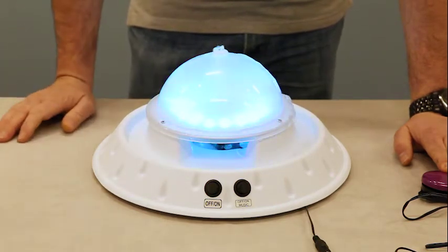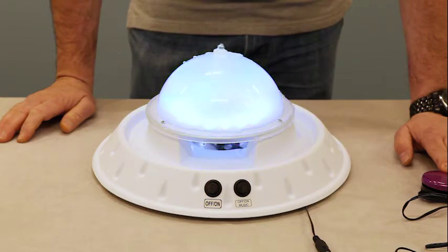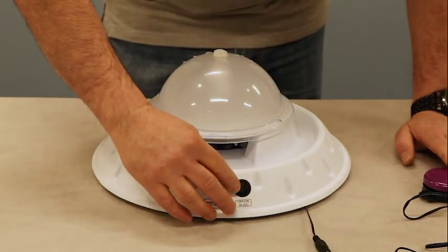So we're using this with switch access first. It may take a second for the water to come through, but it's doing it fine now. You may hear a noise but that's normal. You can turn the music off if you'd like.